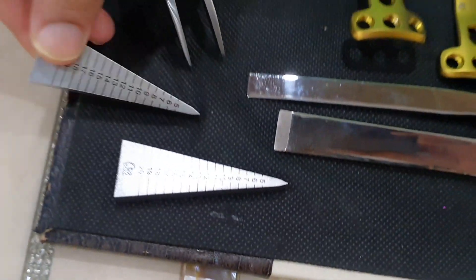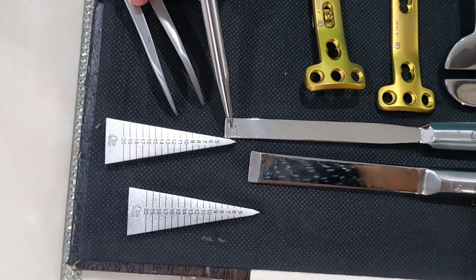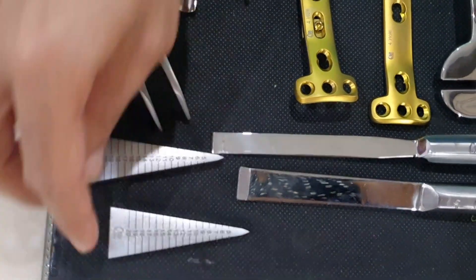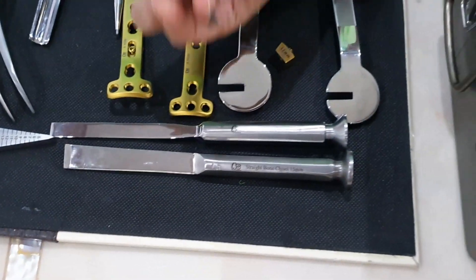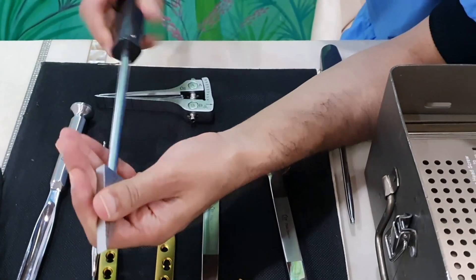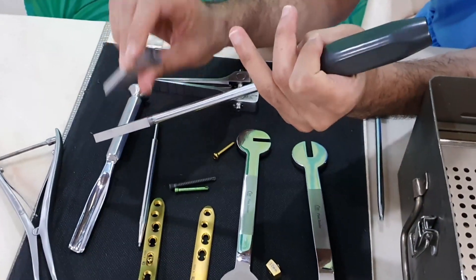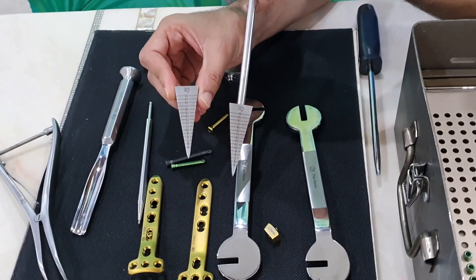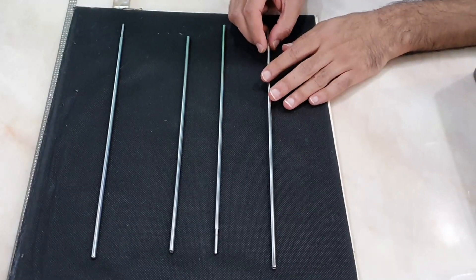The set also includes triangular osteotomy wedges with markings to indicate how many millimeters of distraction is achieved. Holders are associated with these wedges so you can hold and impact them after the osteotomy is done. You can then place the plate or bone graft in between. These two triangular wedges hold the osteotomy opening in its place.